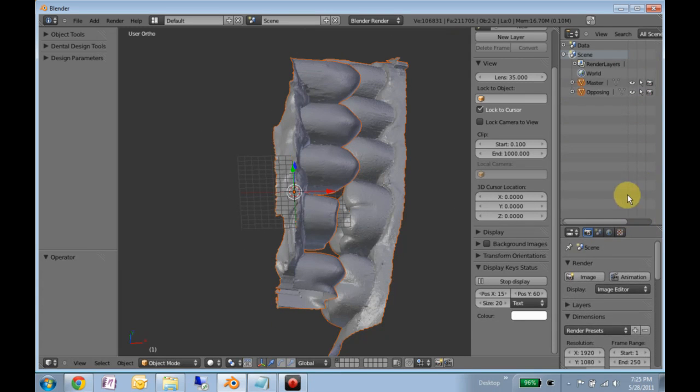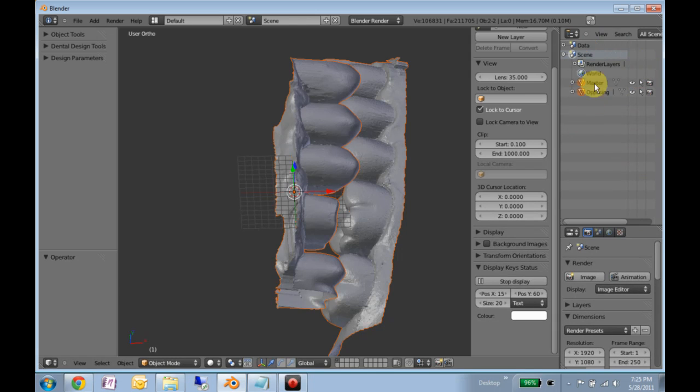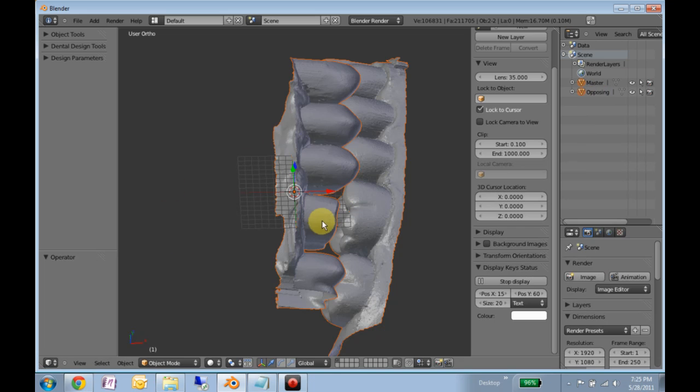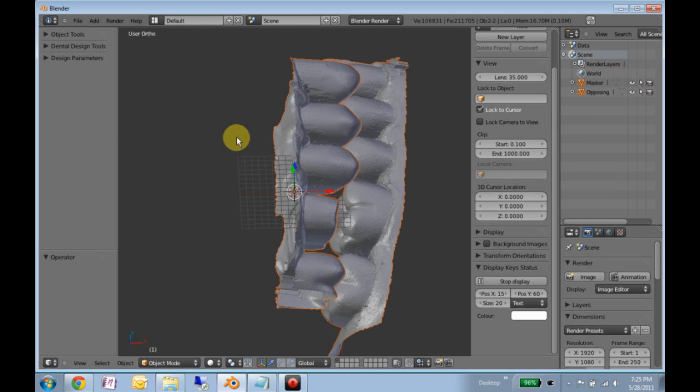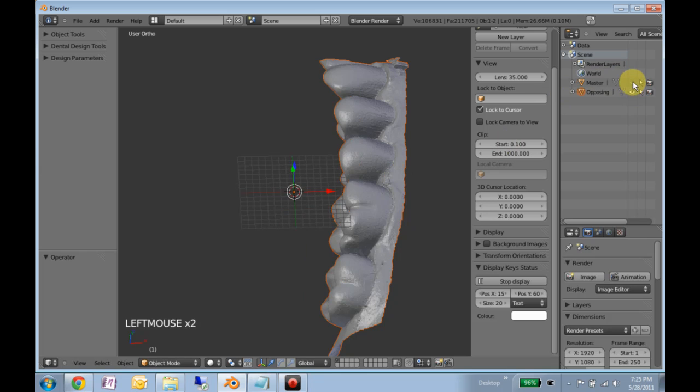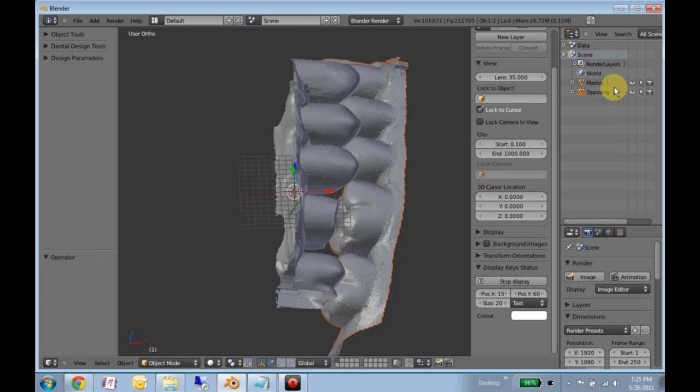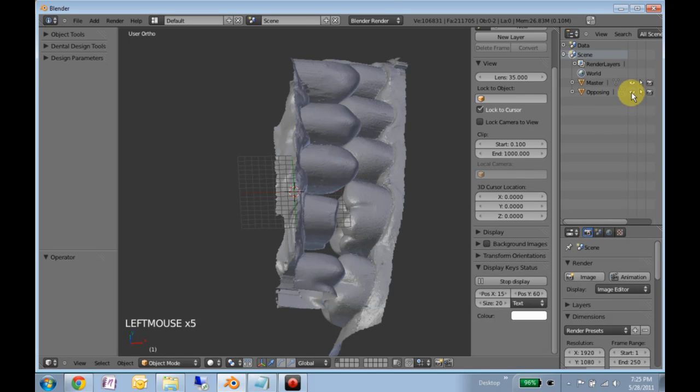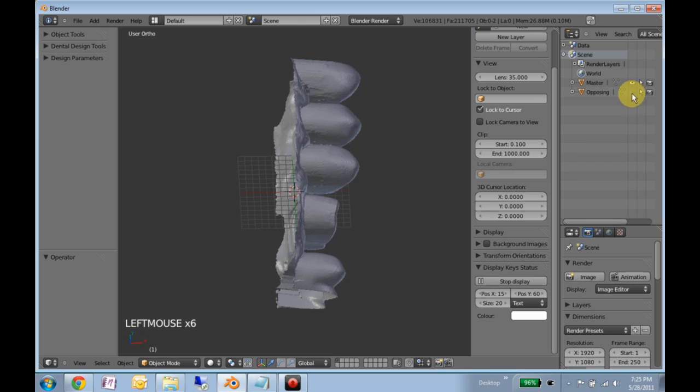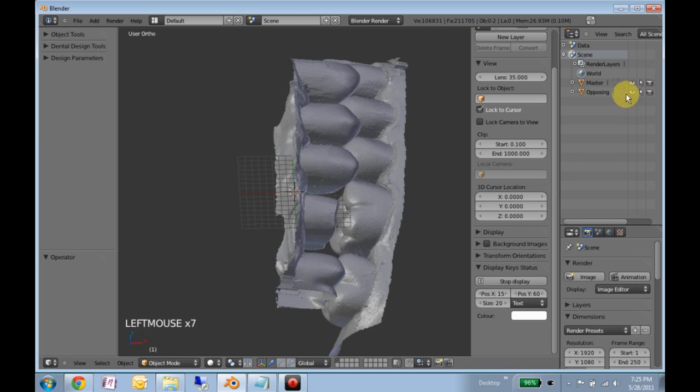We adjust this little pane over here. This is the outliner, and you'll see a list of all the different objects and models in your scene here. At times, as you move through the design process, things will get hidden like this to kind of facilitate the best view possible. But don't worry, they're still there. They're just not being displayed. And so at any point in time, if you want to display something, you can use this little eye to toggle on and off the visibility.